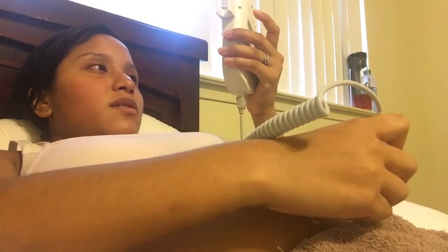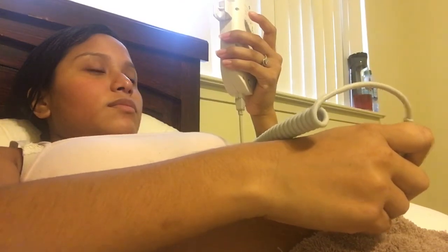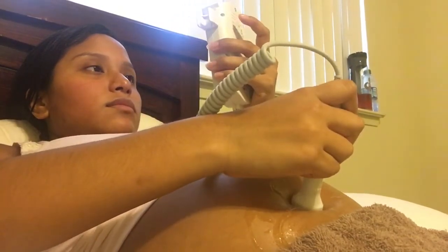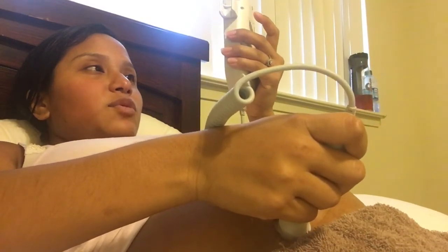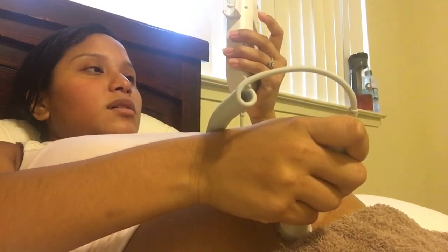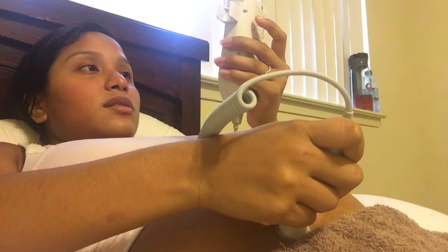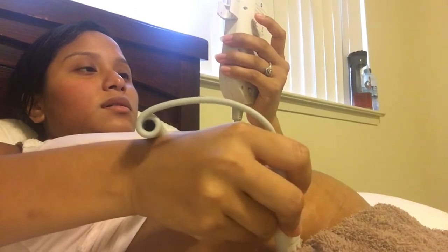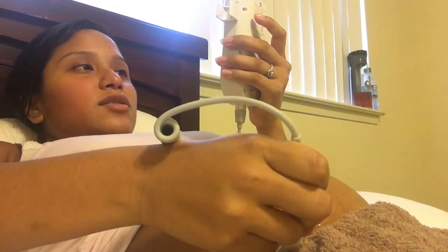I want to find her heartbeat again. It's a little hard because she's big. This right here is not her heartbeat — I don't know if you guys can hear the difference. Oh, she kicked! She's probably getting upset — come on, behave, stop kicking me! She probably doesn't want to be on YouTube.